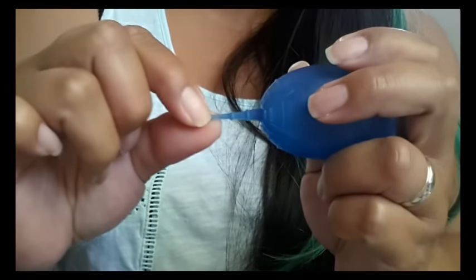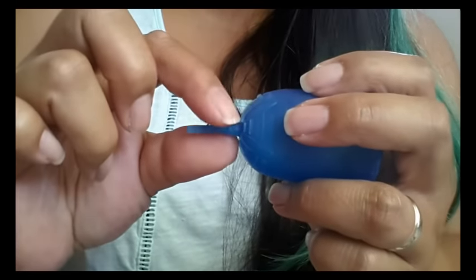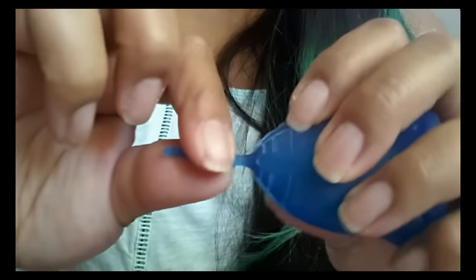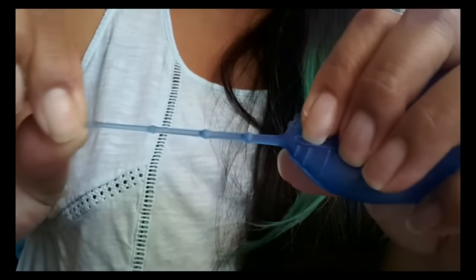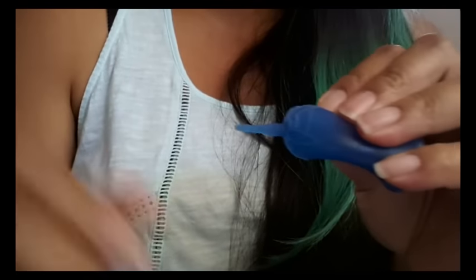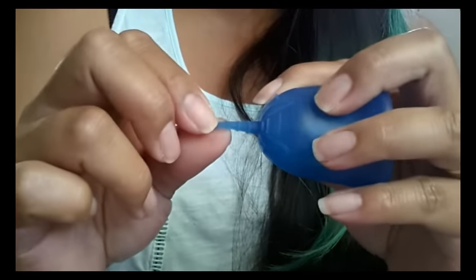If I were to use the stem, I don't like that it stretches. Even though there are four grip rings, because it stretches, those grip rings smash into the silicone and you don't get a good grip. When you get to the end, there's no ball for your fingers to hold onto. When your fingers are slippery, you just slide right off and it snaps back — and that was painful, not just a little uncomfortable. I was very surprised and did not like that. So I know now not to use the stem and just go straight for the base of the cup.